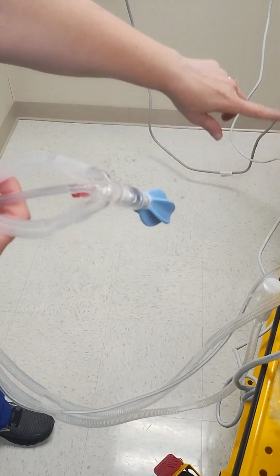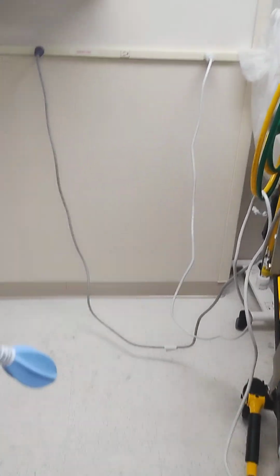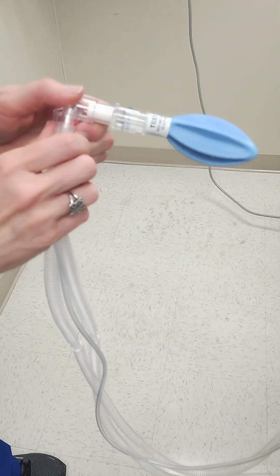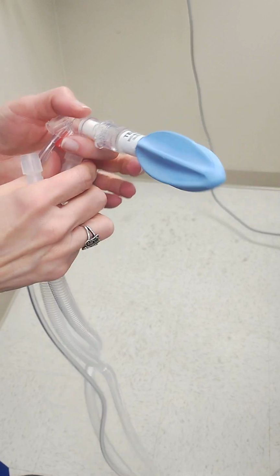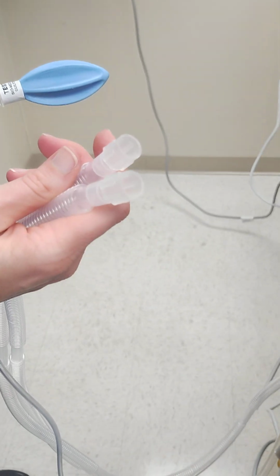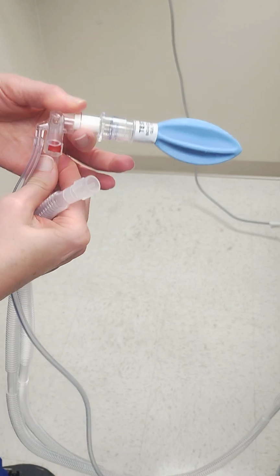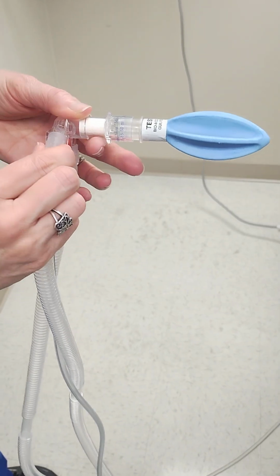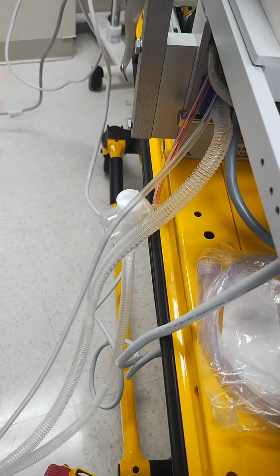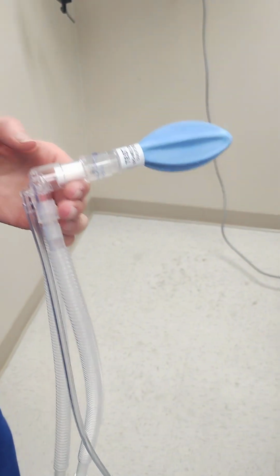So you can follow this tubing to the back of the ventilator unit over there, and that will show you where those are located. If you wanted to do CPAP, this does plug into the Fisher-Paykel flow generator set, and that's why we have this circuit. However, since we use a lot of bubble CPAP, the next time we order circuits, we're going to get the one that has the adapter built into the line right there, so we don't have to worry about getting an extra piece.